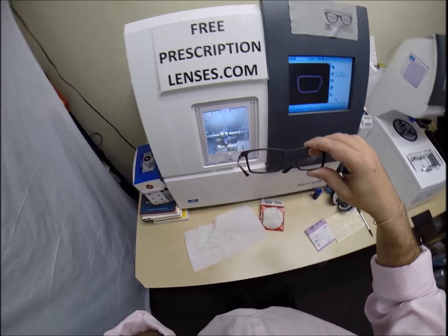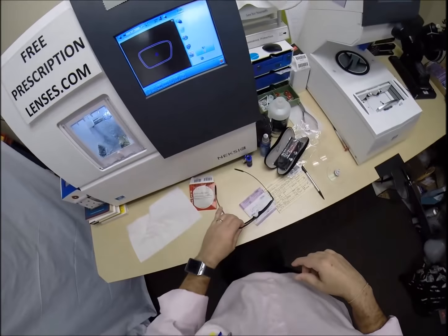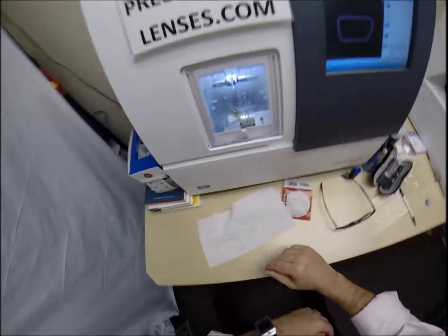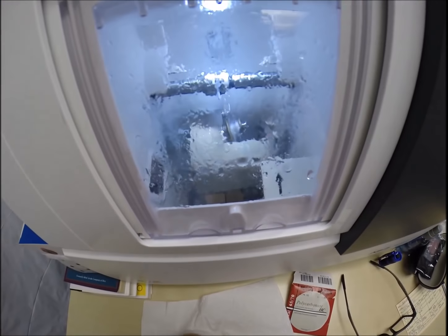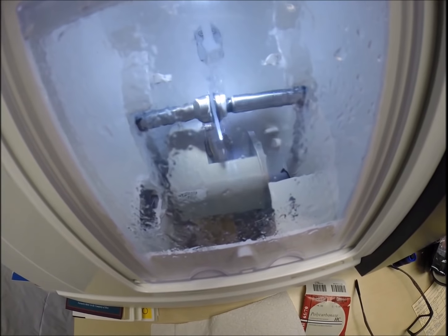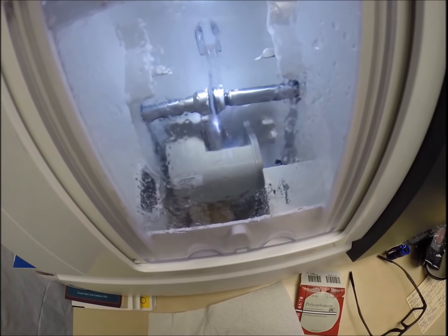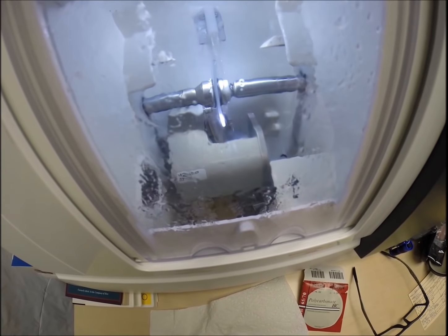If you can imagine your frame being a gutter, the front corner would roll outward, giving you an ugly cosmetic look as well as shortening the life of the frame because eventually when you have all that force from the lens applied to every direction of the frame, the circumference of the frame, it could cause it to break due to unnecessary force. So I do what's known as the cold mount. I do not heat up the frame. The frame front is cold when I insert it in there to make sure that it is a perfect fit. I cut every pair of lenses that gets shipped worldwide. You want a perfectionist like me cutting your lenses. That's why Adolfo has come back for the fifth or sixth time.